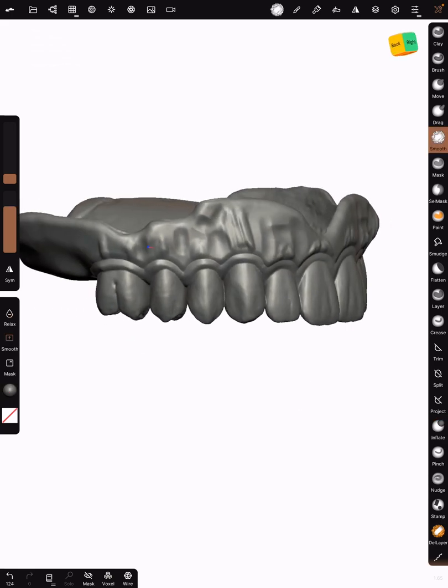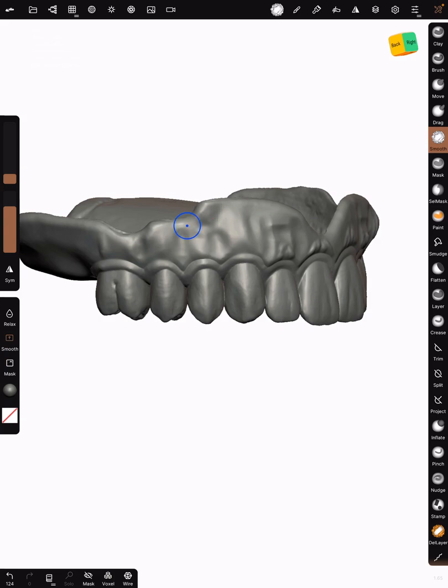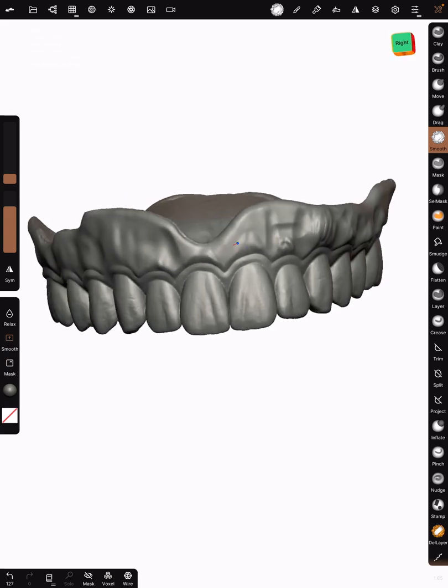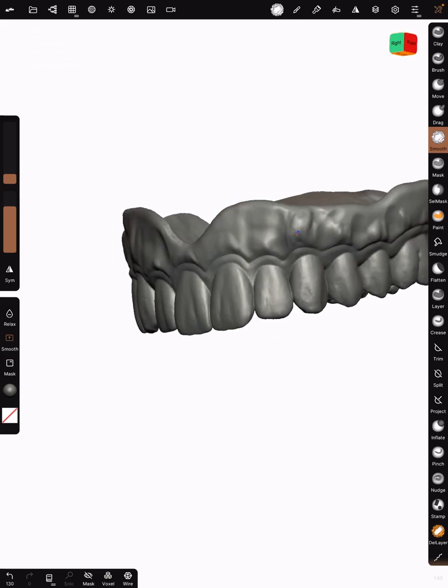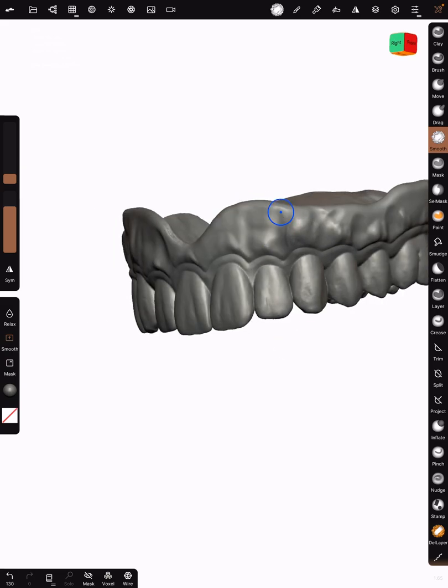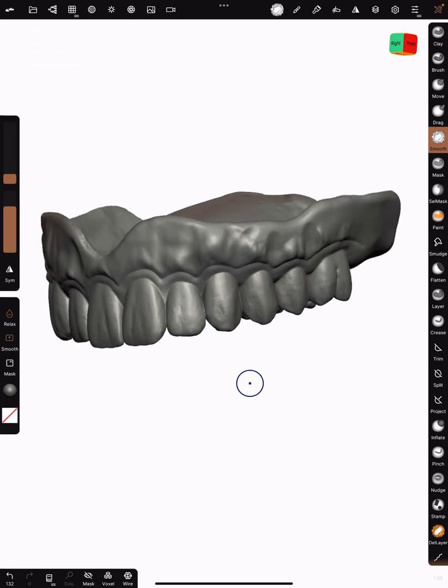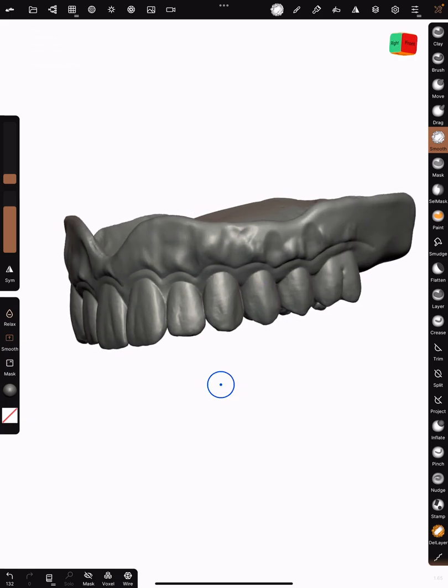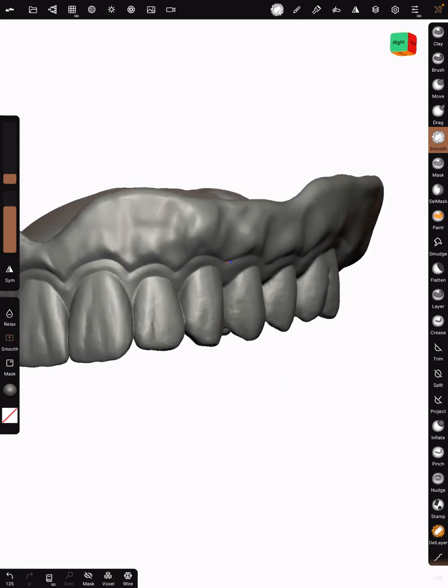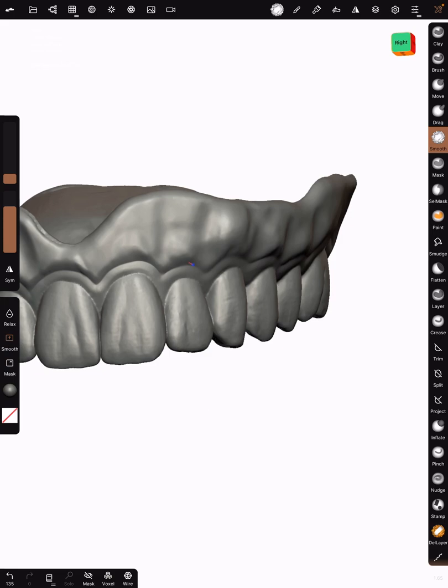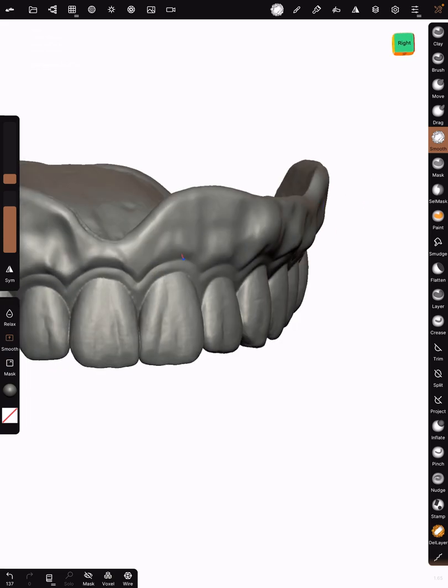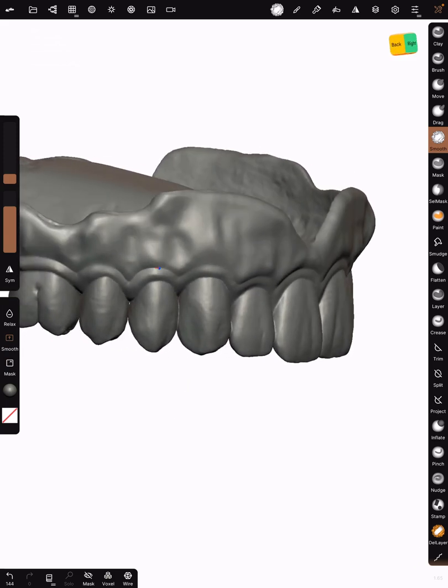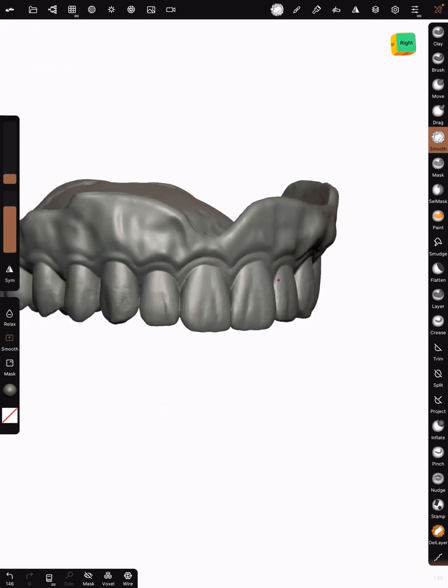Let's smooth this up. Don't be shy when you smooth. It's really going to help change a lot of the disastrous things that happened when you were doing this. The smooth tool is one of my favorites because it makes everything right. I'm going to go ahead and just kind of decrease the accentuation of that crease a little bit, blending those surfaces so it doesn't look like the patient has gingivitis.